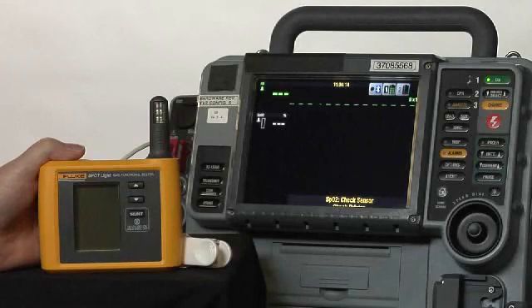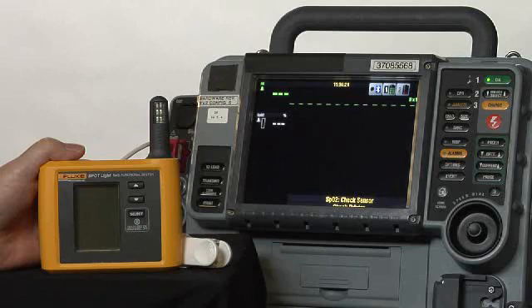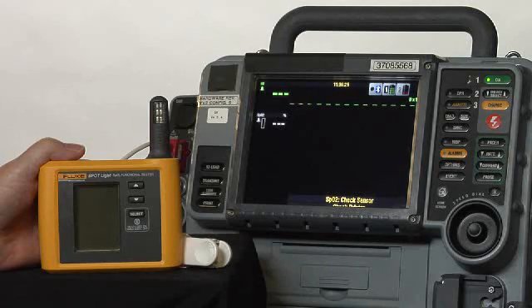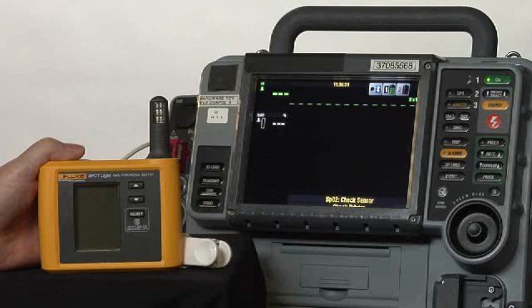The scenario that we're going to talk about today is one that happens every day in the medical facility or hospital where you get a clinical call from the clinical unit. The oximeter is not working on some medical device. So you grab your Spotlight and you go up to the clinical unit.